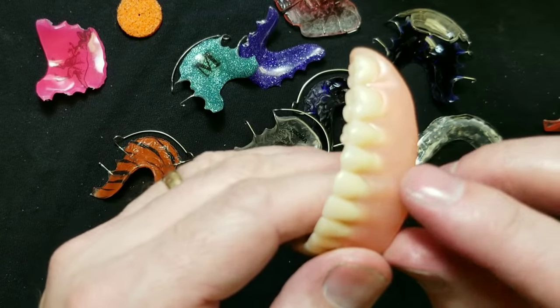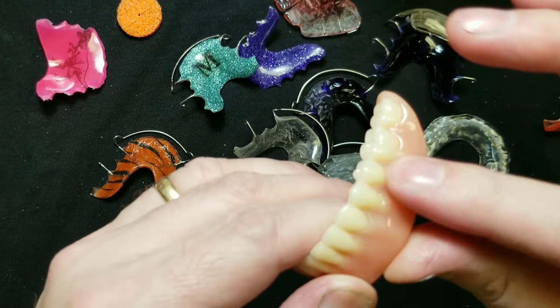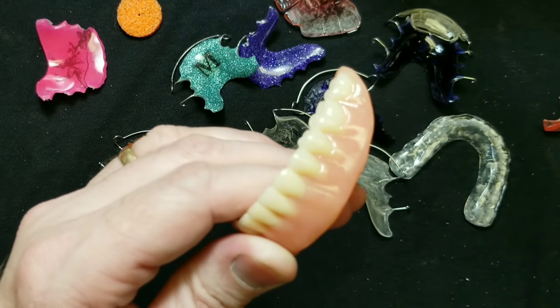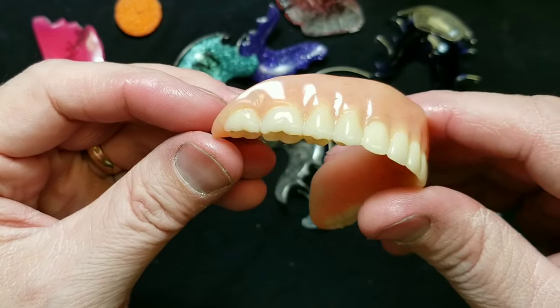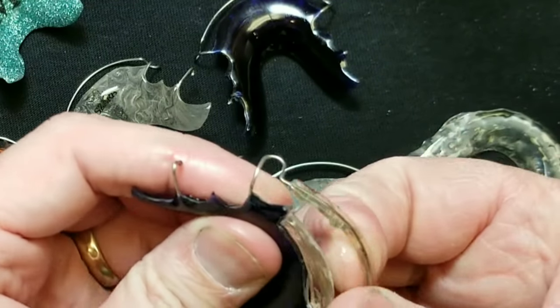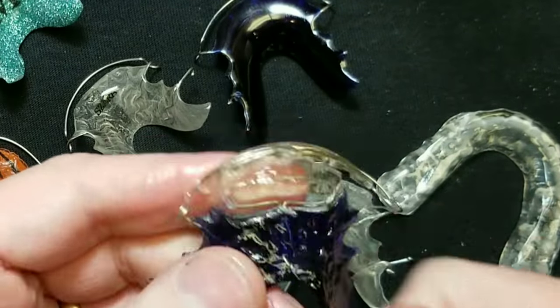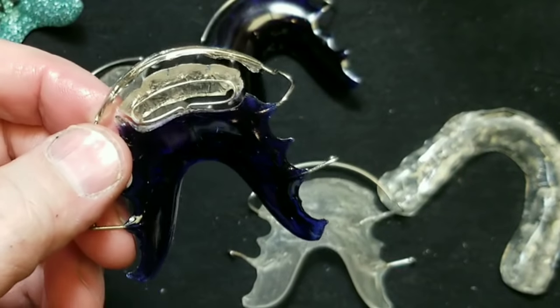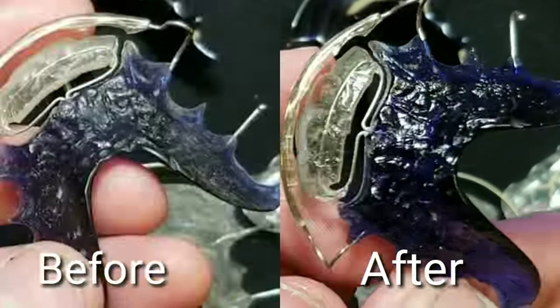Dentures! This is not high shine, but I'm going to demonstrate what it looks like with a little mineral oil if you're not using this. Put a little dab on there, get it interproximal, and it's just going to give it a glowing shine. All your teeth will look like glass. Rub it in. For spring retainers it's awesome — not only do you do this side, you get the bar. You can get in there and really shine it up. It's going to take any appliance to the next level. That looks awesome compared to what it looked like a second ago.